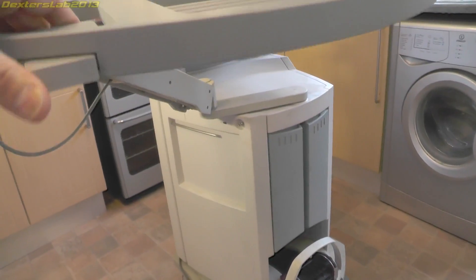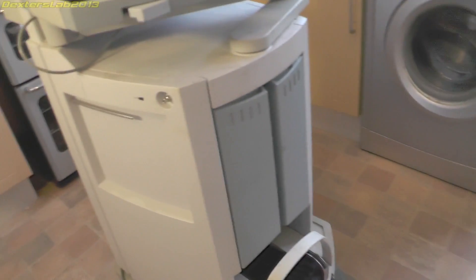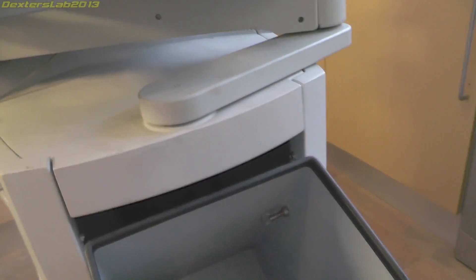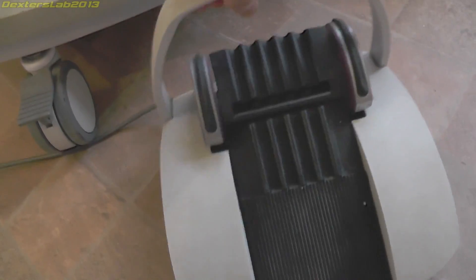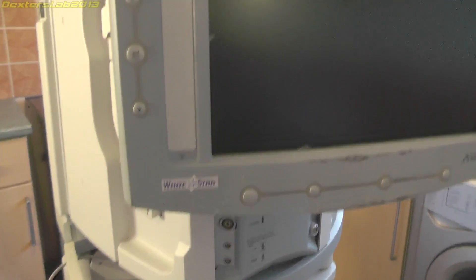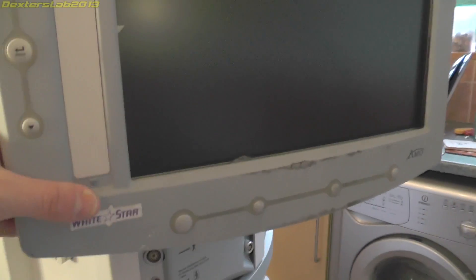You can also raise it as well, which is quite a nice handy thing. In the base there's nothing much — just an empty storage compartment. On the base we have the foot switch. On the top we have the screen with various controls, though obviously I'm not going to be able to go into much detail about those because the screen doesn't work.